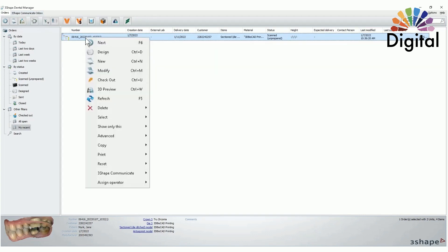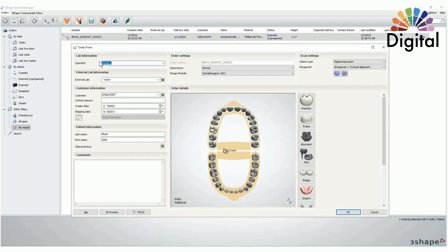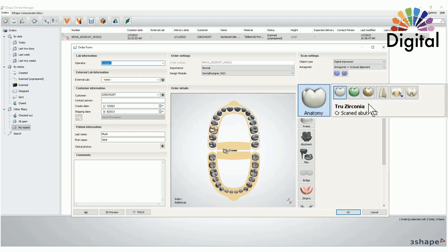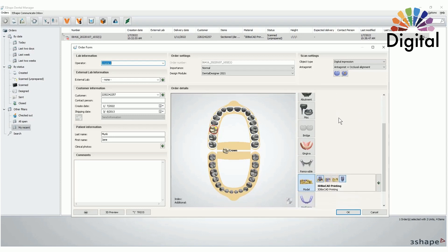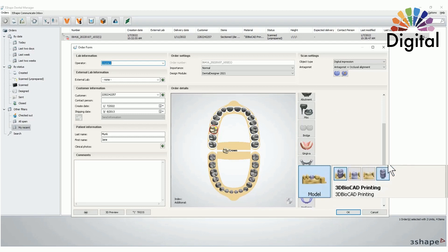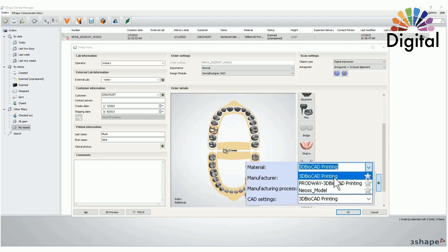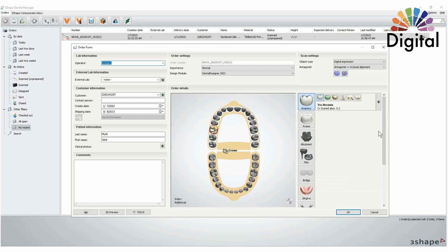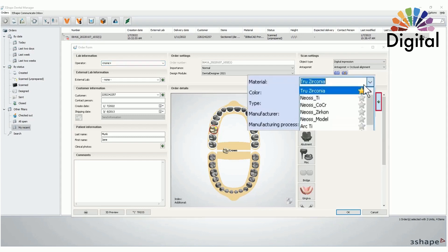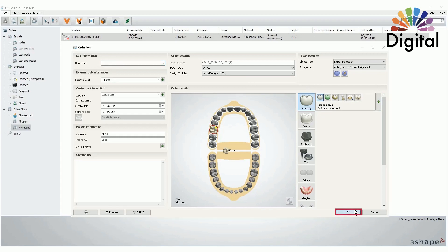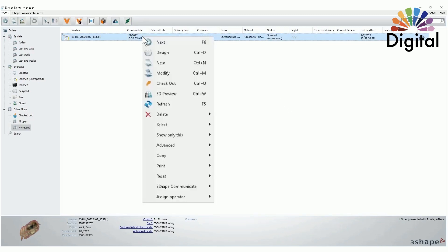Before we start to get into design, please click Modify to double-check and set our order setup. Click the crown number and make sure the material of the crown and the material for your 3D print model. If needed, go to Plus and change your printer setup. Also if needed, click Plus to change your crown material. Once it's good, click OK, then right-click and click Design. We'll do crown design first.